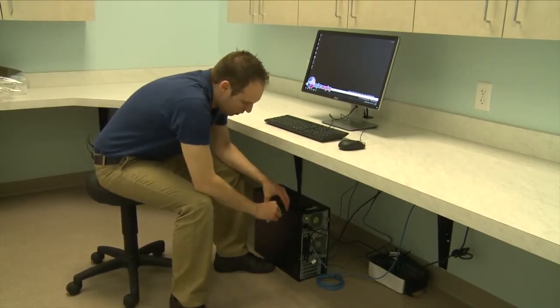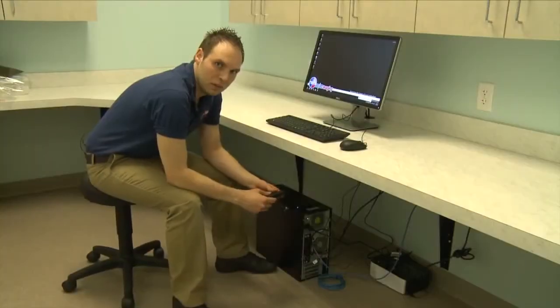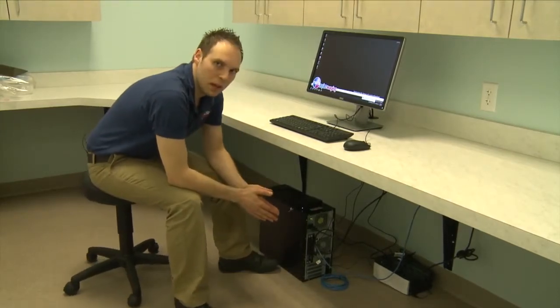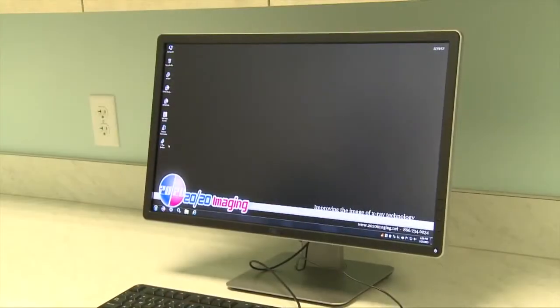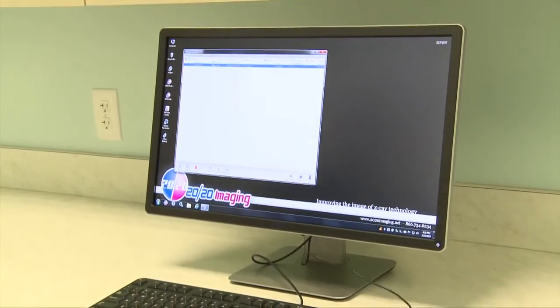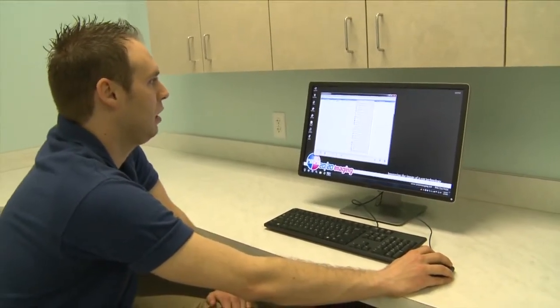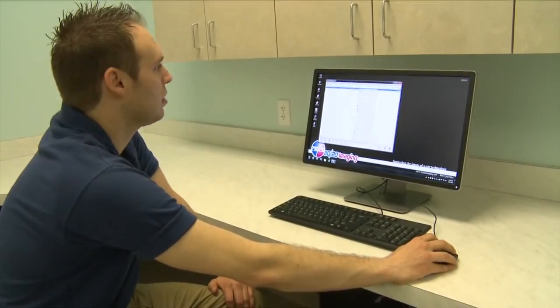You want to ensure that there's always one drive plugged in and the other drive, once the staff leaves for the night, can be taken with them. Once they come back in the morning, they simply put it back and be sure that they switch it one time a day, whether it's in the morning or at night when they leave. To check your backup, simply run the x-ray backup shortcut from the desktop. You can run a manual backup to test by right-clicking on a job listed, click run, and ensure that the result says success on each job.